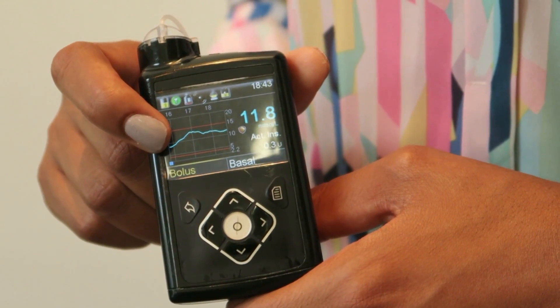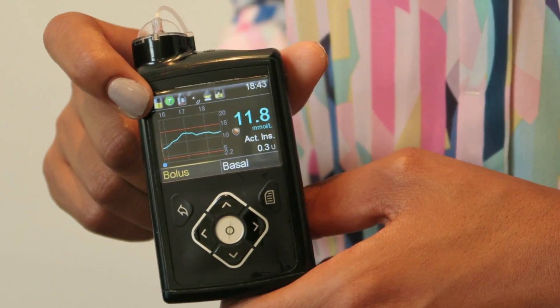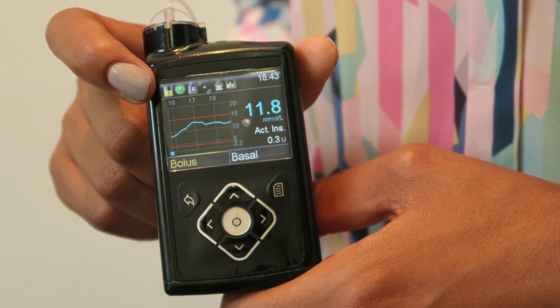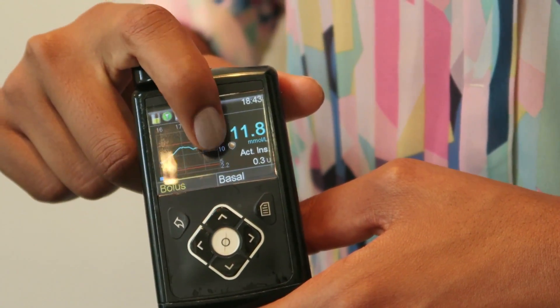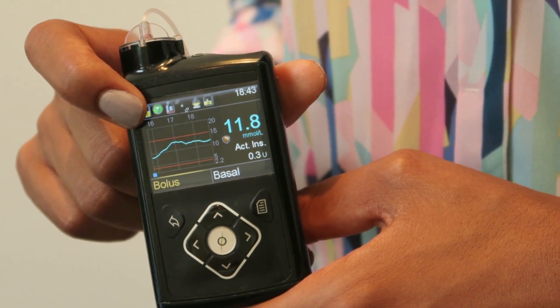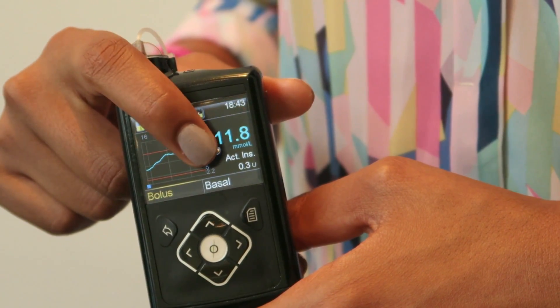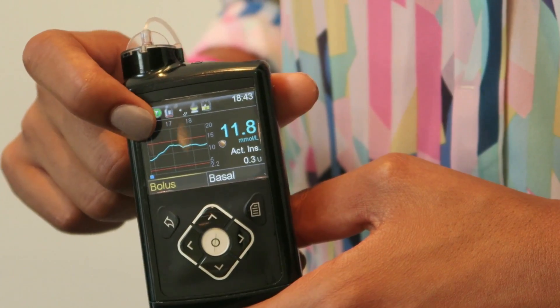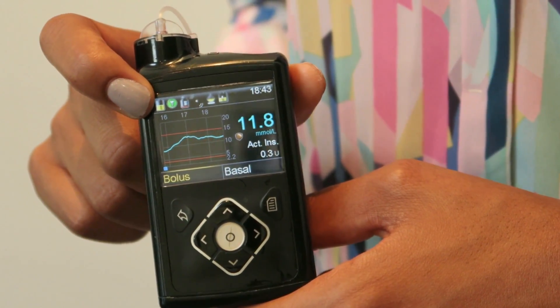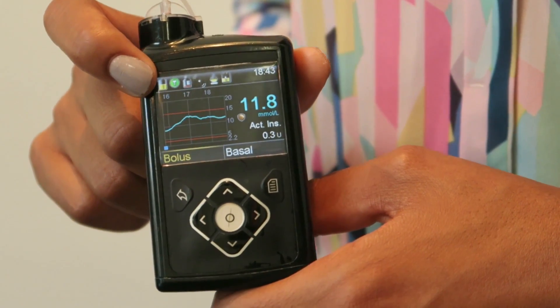We've also got a graph of what the sensor tells me my glucose levels are doing at the moment, which is really handy to see, and you've also got the current reading that the sensor is giving. Quite often arrows appear where the glucose level is, telling you which direction your glucose levels are moving in and at what speed, which is really helpful.